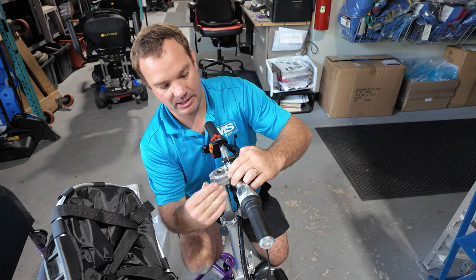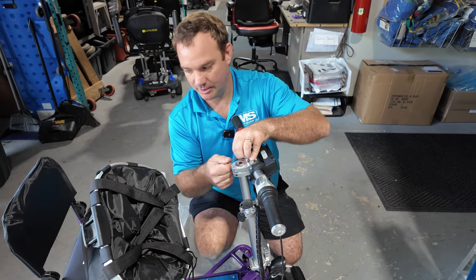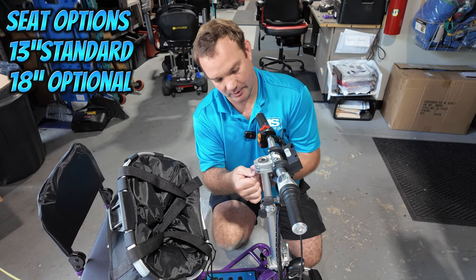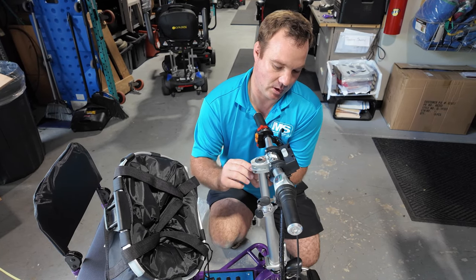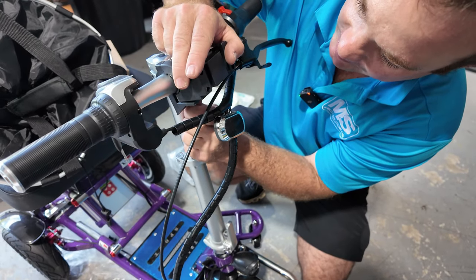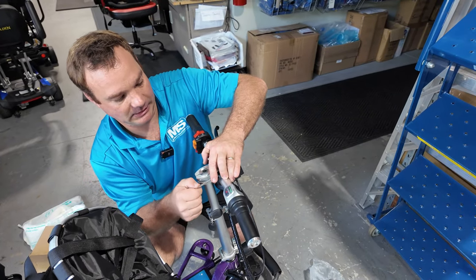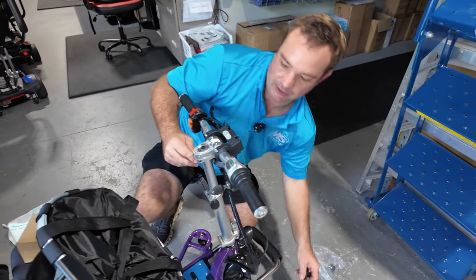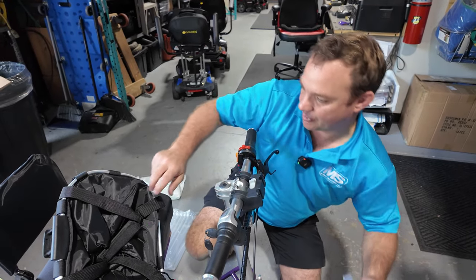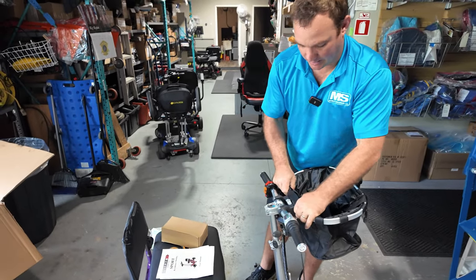If you're looking for a scooter with some speed and a really fun ride, this is it. Long battery, TSA-approved battery option. The regular seat is a little small, so if you need a wider seat, get the 18-inch seat — you can always add it later. This just clips on, and then there's your little basket. If you want to lock it, you can lock it so it stays on.